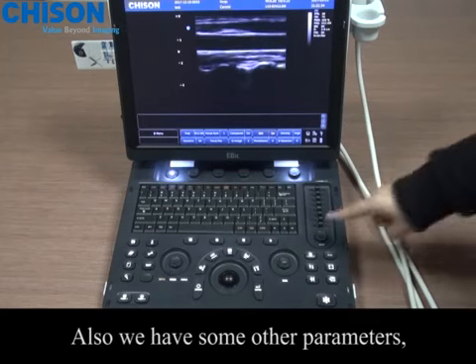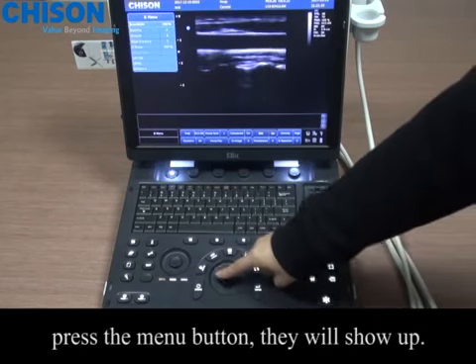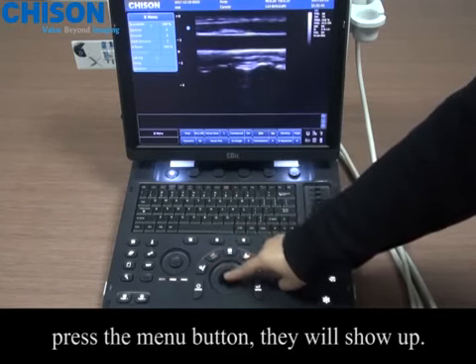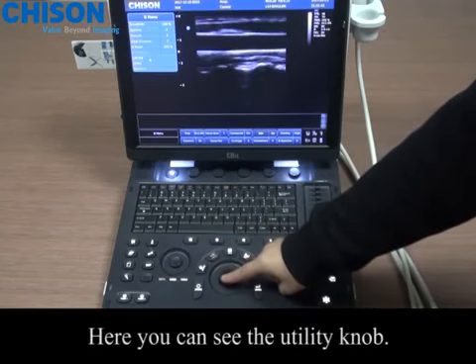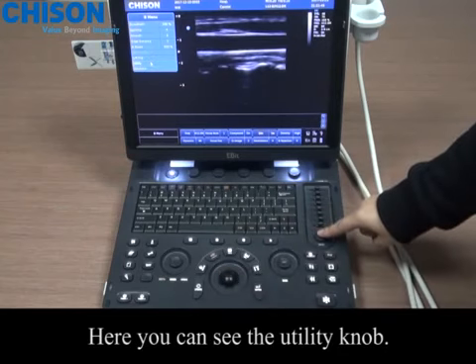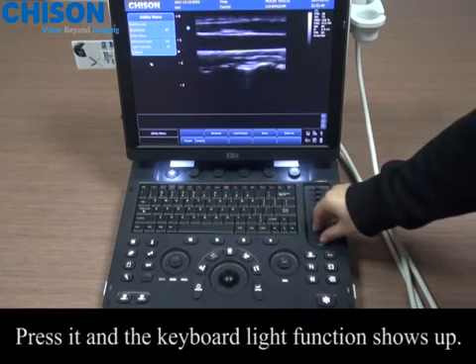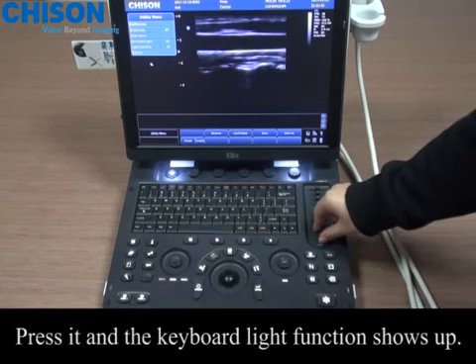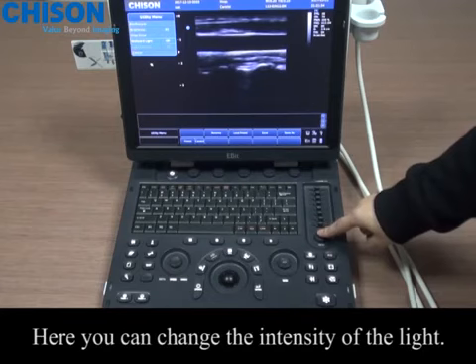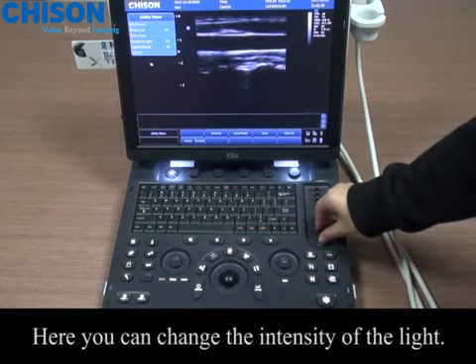We also have some other parameters. Press the menu button and they will show up. Here you can see the utility knob. Press it and the keyboard light function shows up. Here you can change the intensity of the light.